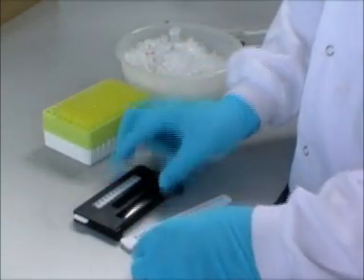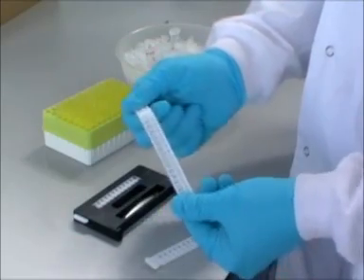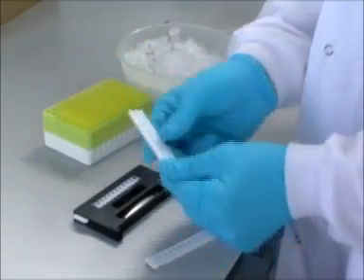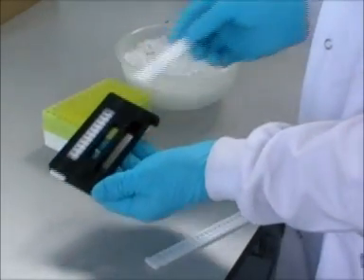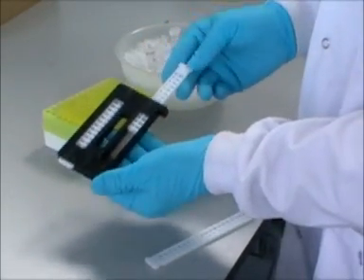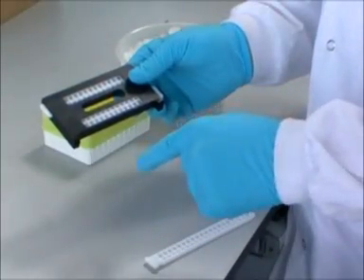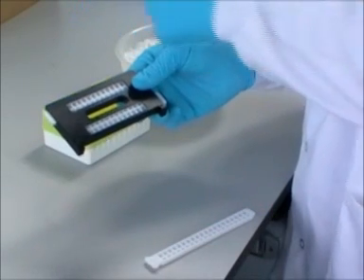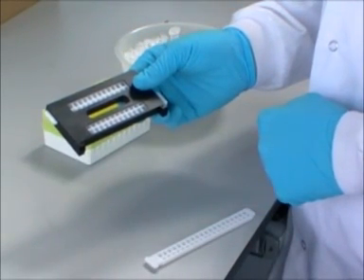The gel to be loaded in the next part of the presentation is an acid gel. That is one where the incorporated buffer normally has a pH around 6. Under the acid conditions, haemoglobin variants migrate variously from the point of application towards the anode or the cathode. And therefore the samples need to be applied in the middle point of the gel.